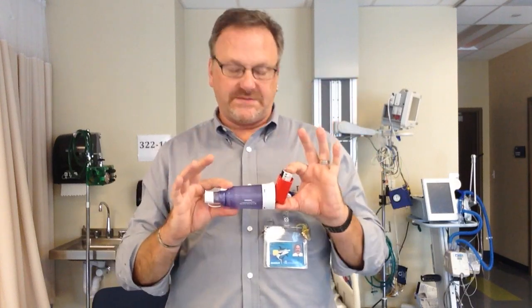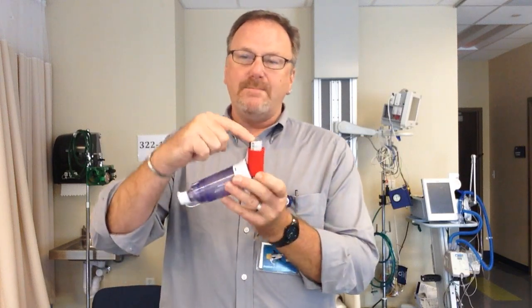The next question is: how long do you wait between puffs? We tell patients they need to wait one minute between puffs. That's not for the action of the albuterol in the lungs — it has to do with the medication-to-propellant ratio. You have medicine and stuff that makes the medicine go. If you go puff-puff quickly, you cannot guarantee the patient will get the accurate dosage. You want to shake it between puffs. How long do you actually have to wait is about 25 to 30 seconds, but we tell patients one minute — so when they go home and cheat, they'll actually wait about 30 seconds.